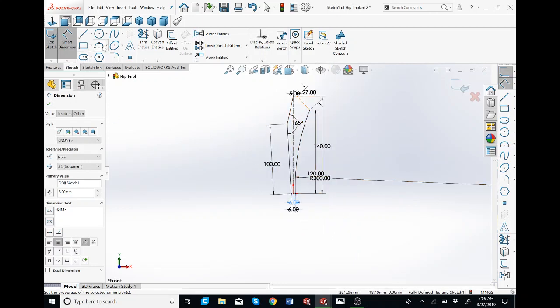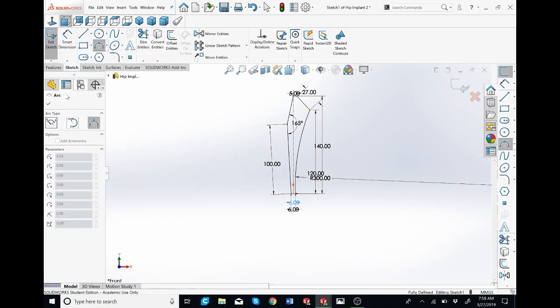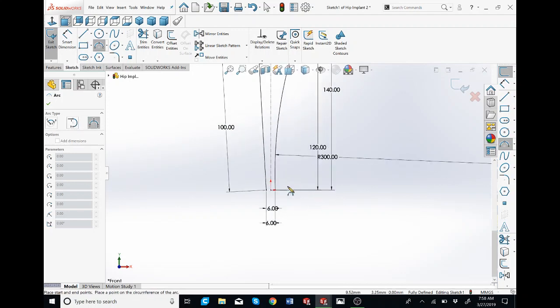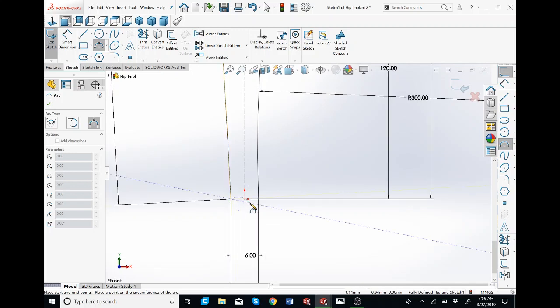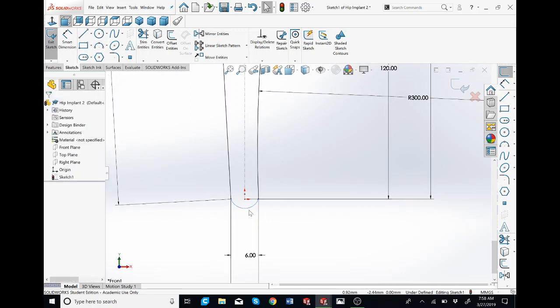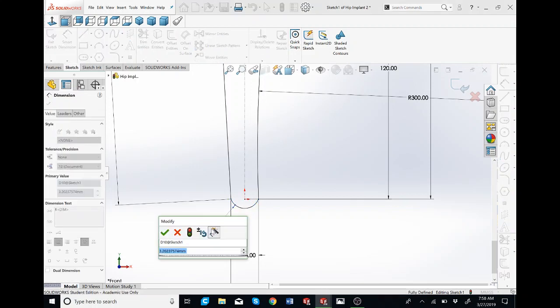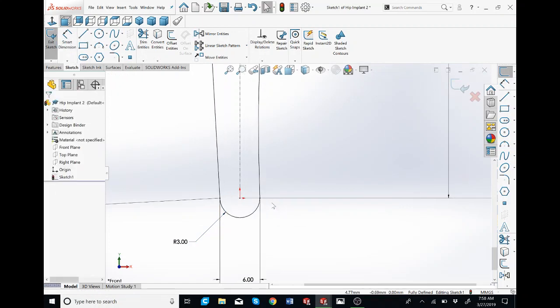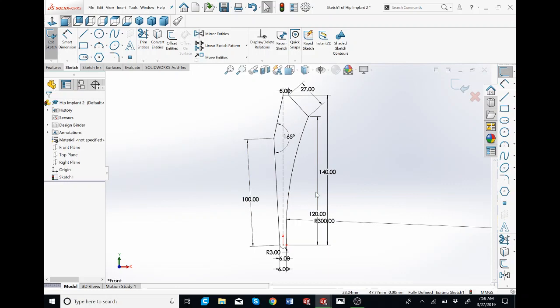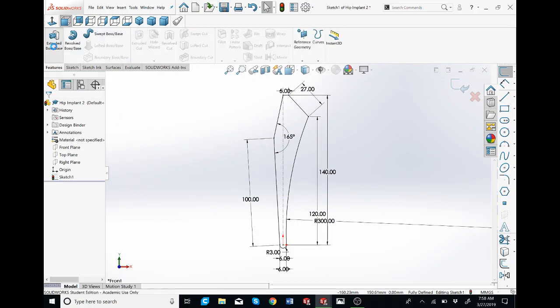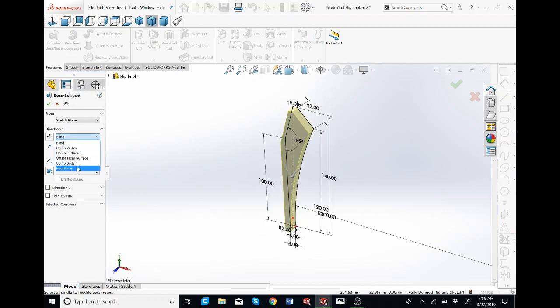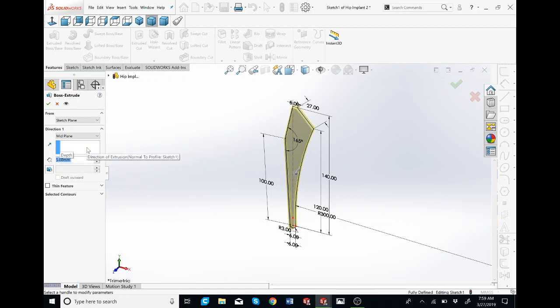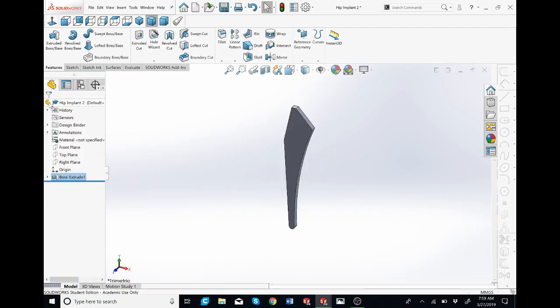You can see that it moves it all to the side — that's okay. You can just drag the point and move it. We're going to dimension this point to this point to be six. So I'm going to hit Smart Dimension, click on this point, click on this point, and make this six. All the lines are fully defined right now. Now we're going to make another three-point arc. Press escape a couple times. I'm going to dimension this arc to be 3 millimeters in radius, press escape, and now the whole sketch is fully defined. Now we're going to go to the features tab, hit extruded boss slash base. We want this direction to be mid-plane, just so everything is symmetrical. We're going to make this 5 millimeters, press check — and that's the first feature.